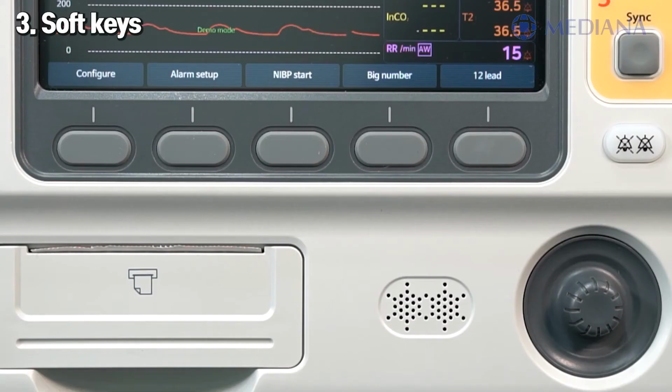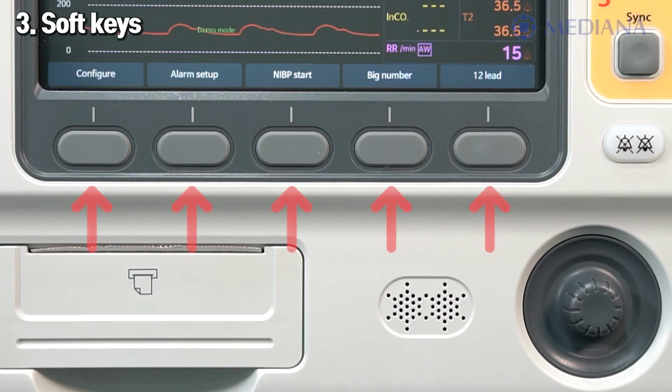At the bottom part of the front panel, there are soft keys, printer, speaker, and multifunction knob. There are 5 soft key buttons that perform the function listed on the soft key label, which is right above. The button labels change according to the function you are performing.